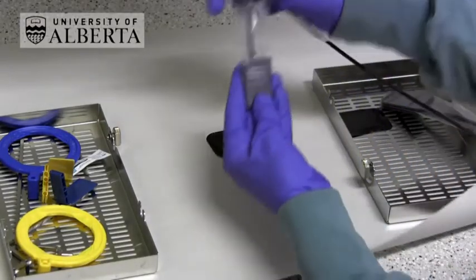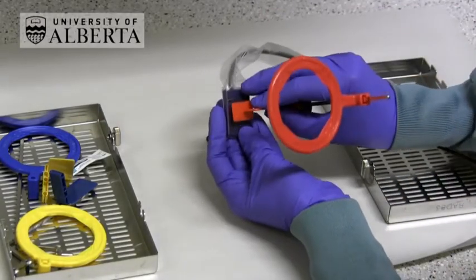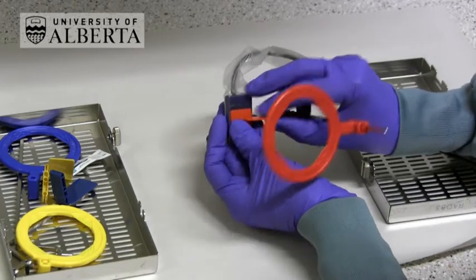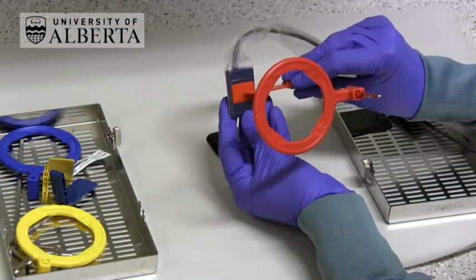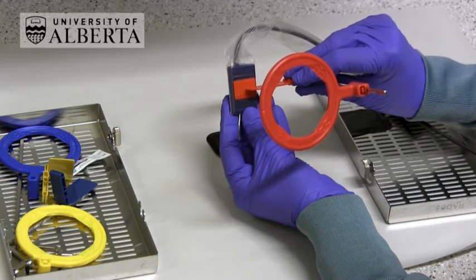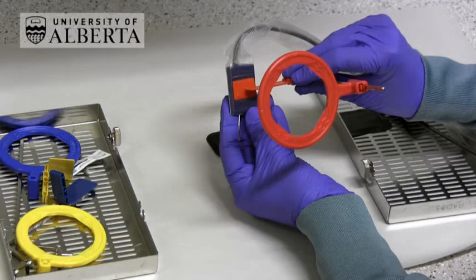I usually find that a size 1 direct sensor is recommended when doing bite wings using the direct sensor. Patients often find a size 1 sensor easier to tolerate and to close together.